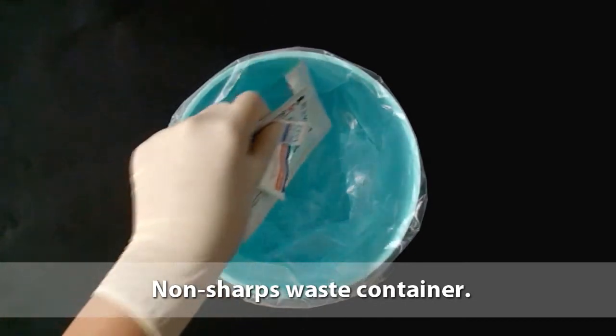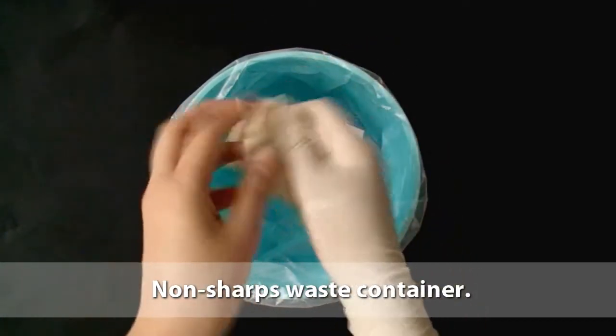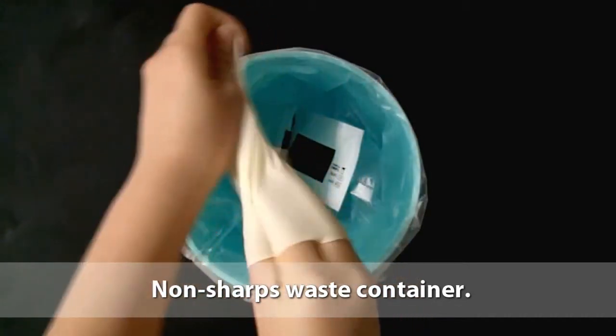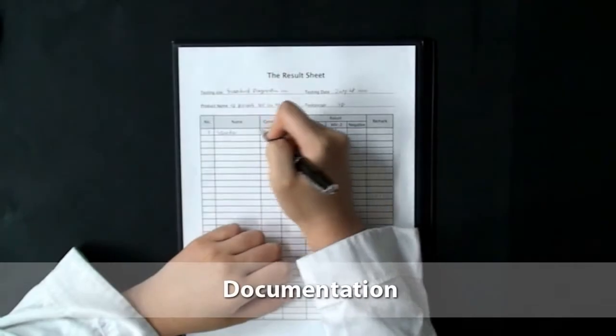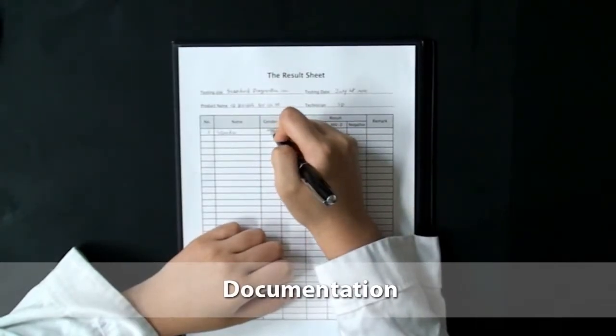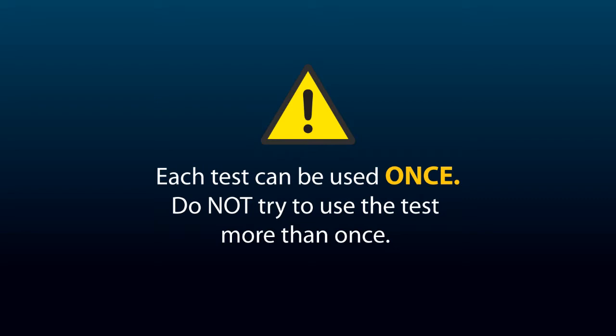Dispose of test materials such as the test device, gloves, alcohol swab, desiccant, and packaging in a non-sharps waste container. Record the test results. Now remember, each test can only be used once. Do not try to use the test more than once.